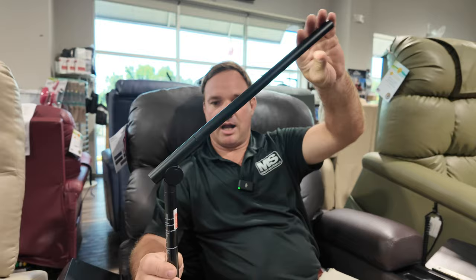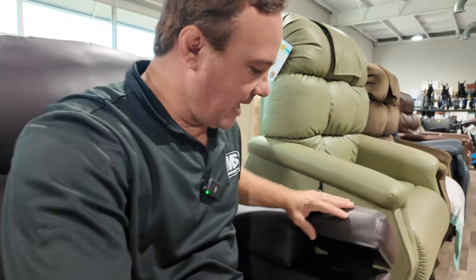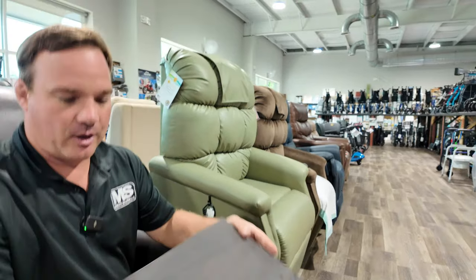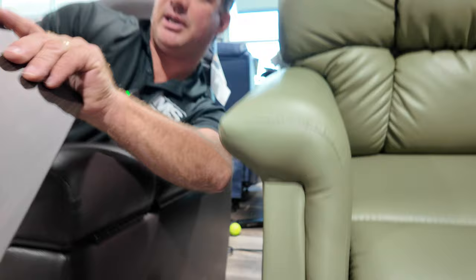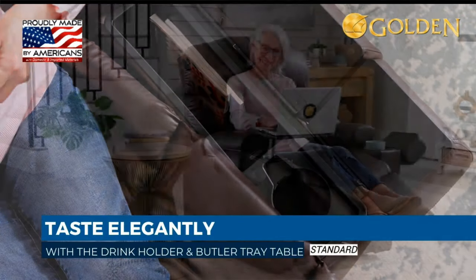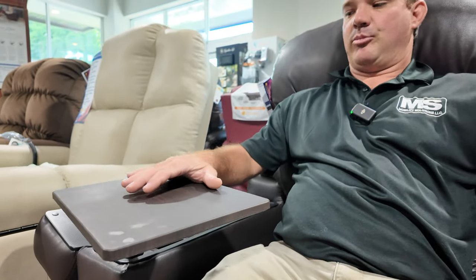The light is all-touch, can be folded down and moved around, and goes right back into the box. On the other side is a tray that can come out — it actually stores in the side of the chair in a little hole. It's very convenient. It's not a huge tray, but it's good for a laptop, or you can swivel it and have your breakfast right there.